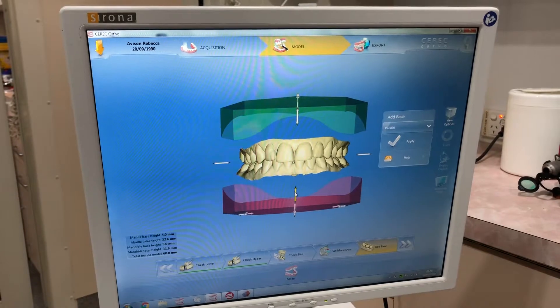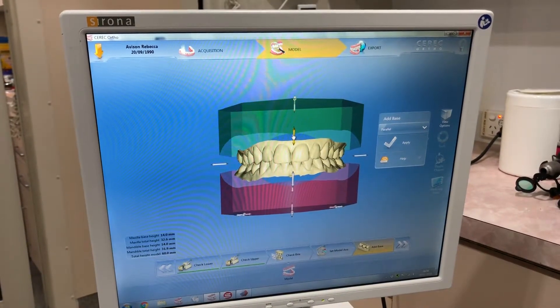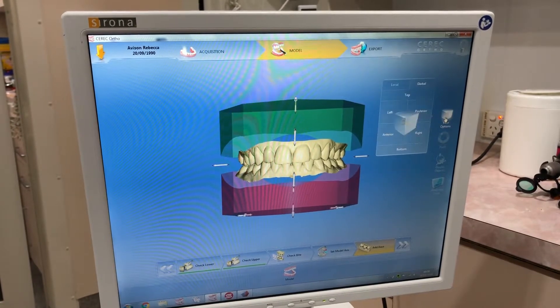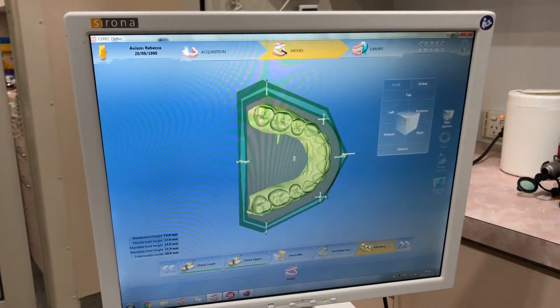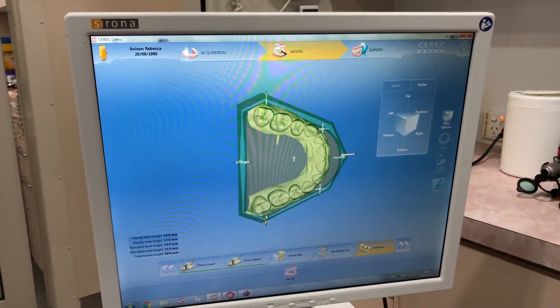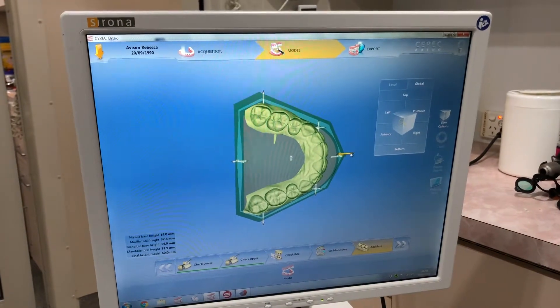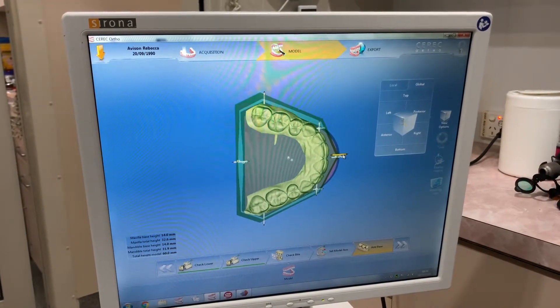I add bases to help me with my orthodontic model planning, but if this is just for retainers, you don't need to add a base. I like to use a maxillary and mandibular base height of 14mm. To get two bases on my Moonray printer, I need to make the bases smaller because the default size just won't fit on the printer.